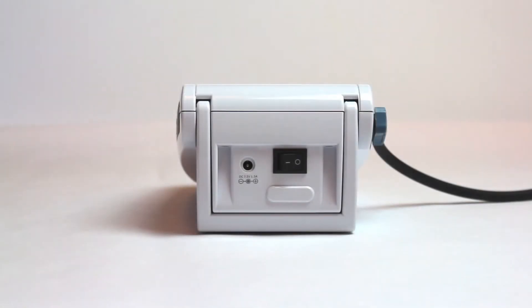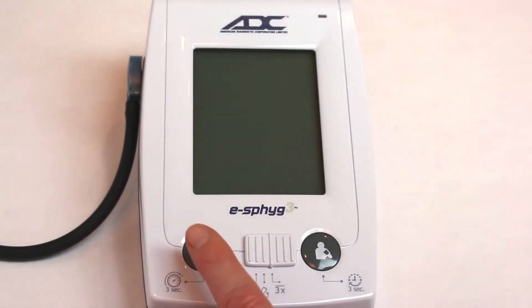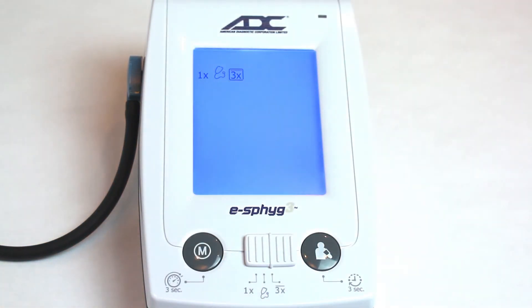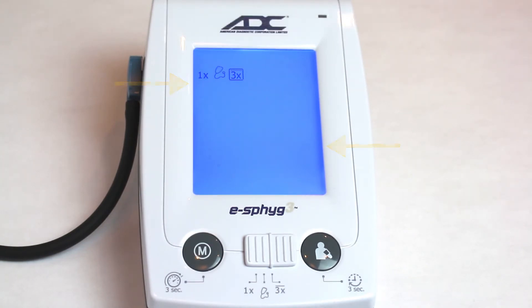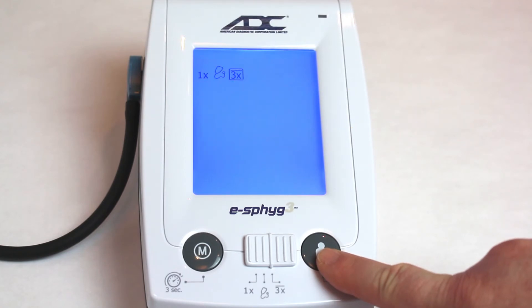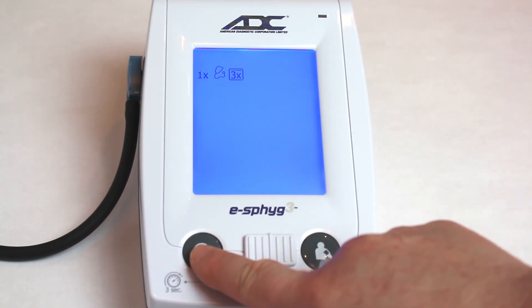To change the unit of measure, make sure the device is switched off. Press and hold the Memory button, then press the Power button. When the backlight illuminates, release the Memory button. The current setting will begin flashing. Press the Start-Stop button to change the unit of measure, then press the Memory button to confirm the selection.